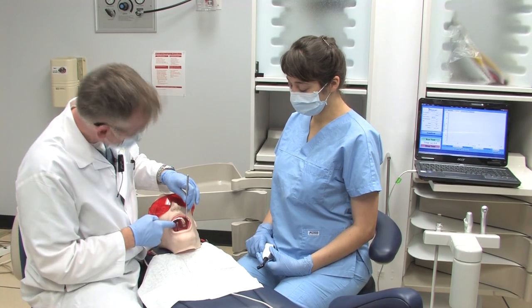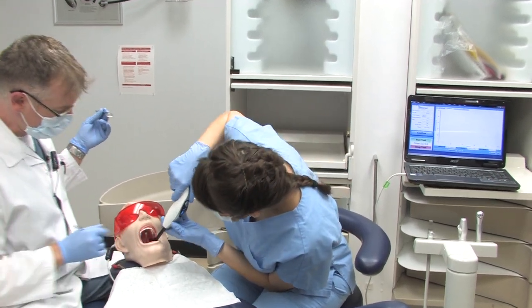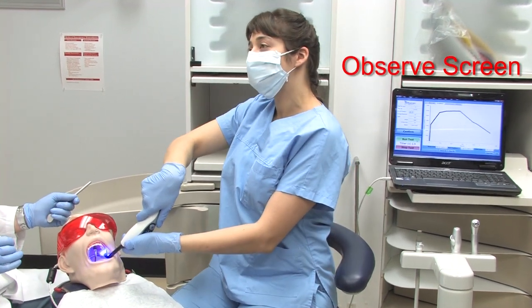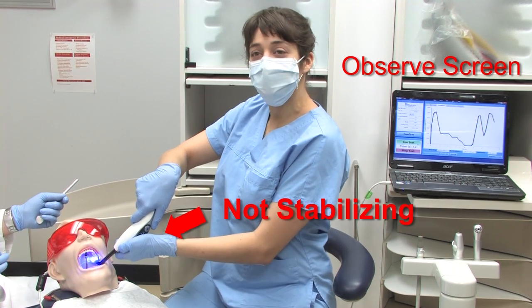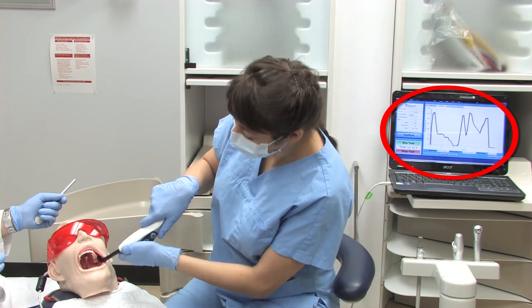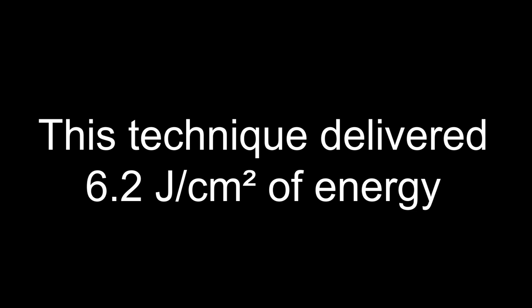In the first demonstration, the operator is asked to cure tooth number 27. During the procedure, the operator was distracted by a colleague asking for help with an impression. This technique delivered 6.2 joules per centimeter squared of energy to the simulated restoration in the posterior tooth.